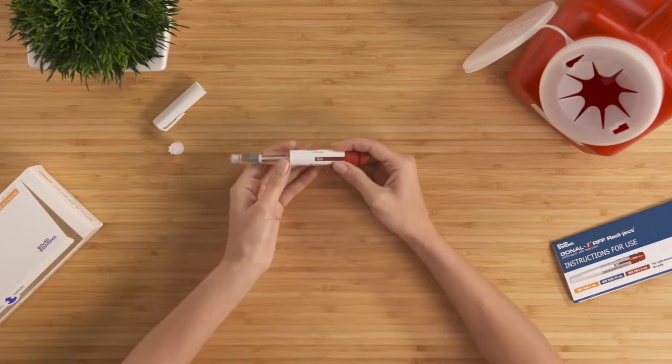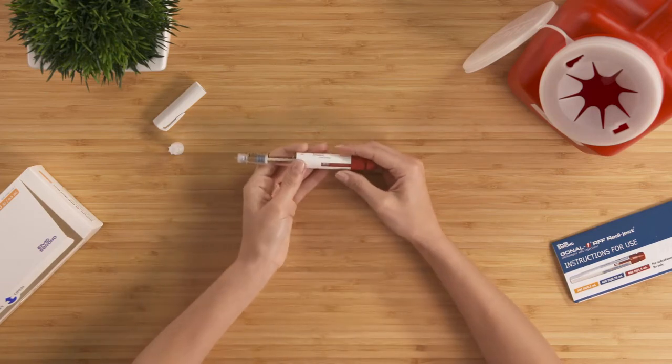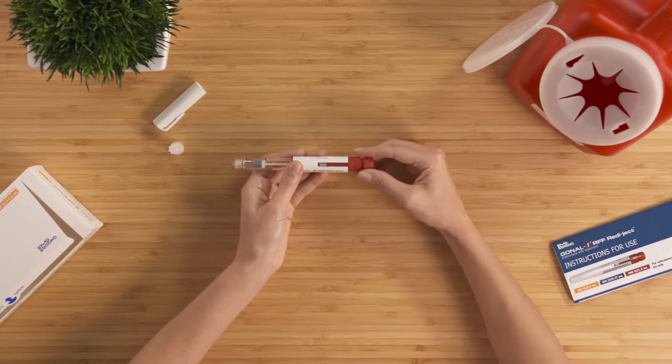If you're not sure of your dose, call your healthcare provider to make sure you have the correct dose. Be careful not to push or pull the dose knob while you turn it to avoid damaging it.